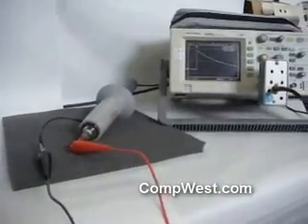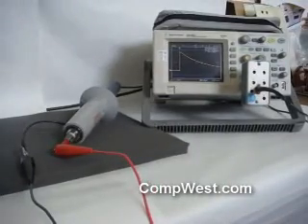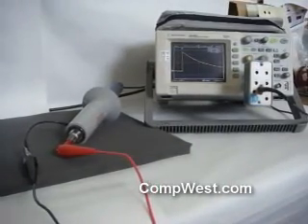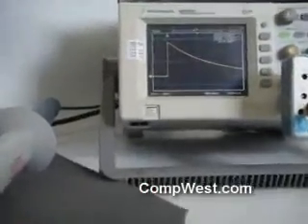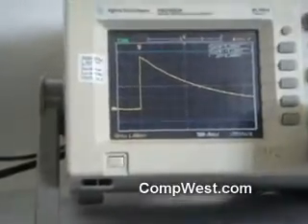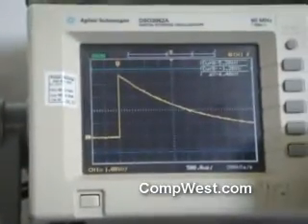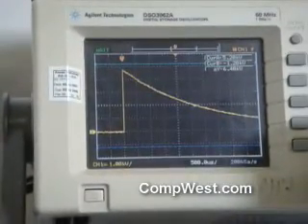The waveform of the DeFib5 is now displayed on the oscilloscope. This waveform is now captured and can be saved, and parameters such as rise time and pulse duration can be determined.